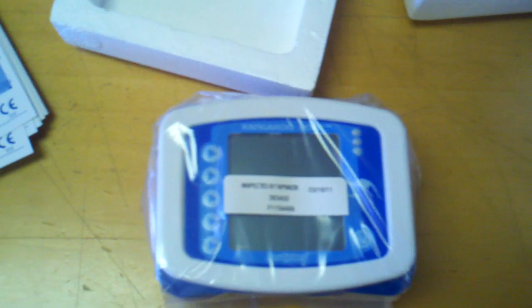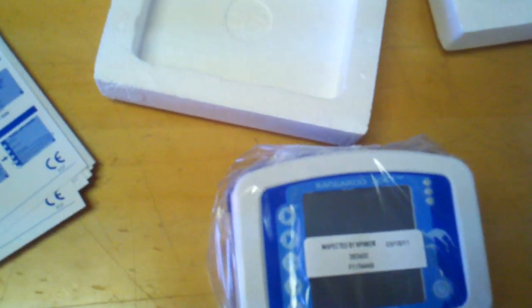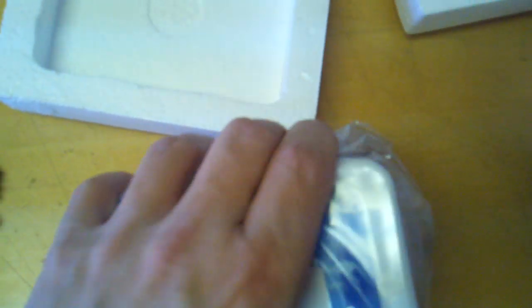As you can see, it's very small, like I said again. And this is the Joey Kangaroo Welcome Kit, which I'm going to absolutely recommend. I've seen other ones out there that are a lot bigger.